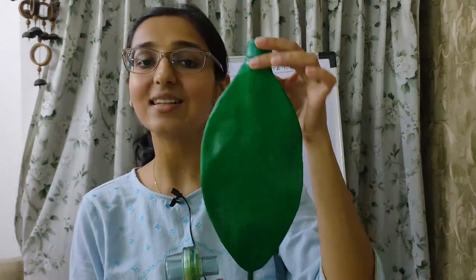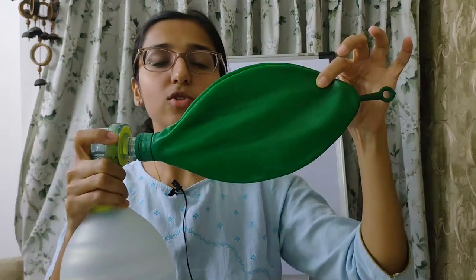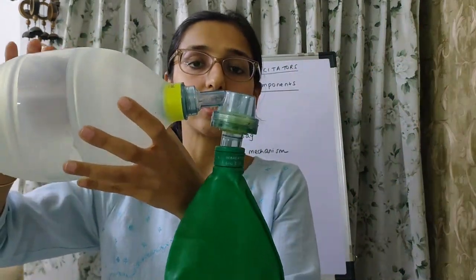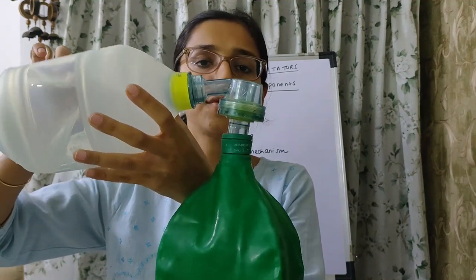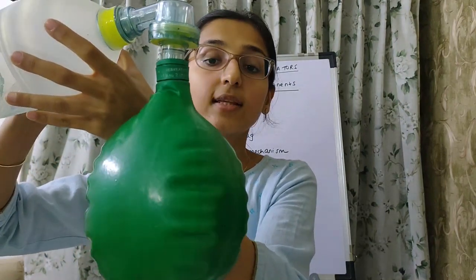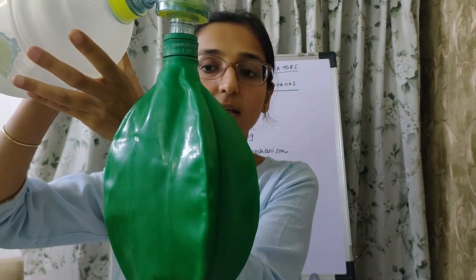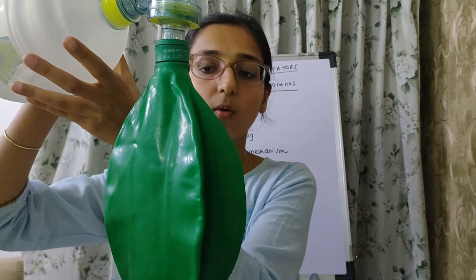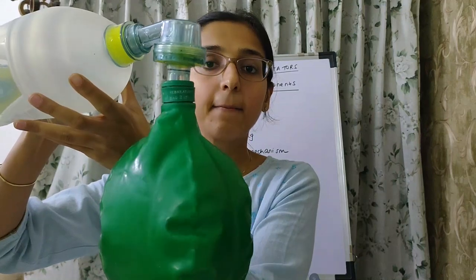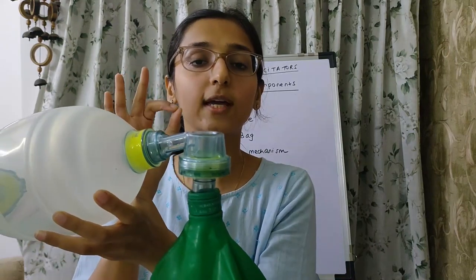Using a test lung, ventilate as if for a patient. The bag should deflate and reinflate smoothly. Smooth deflation and inflation confirms that both the inspiratory port and the expiratory port are patent and working correctly.